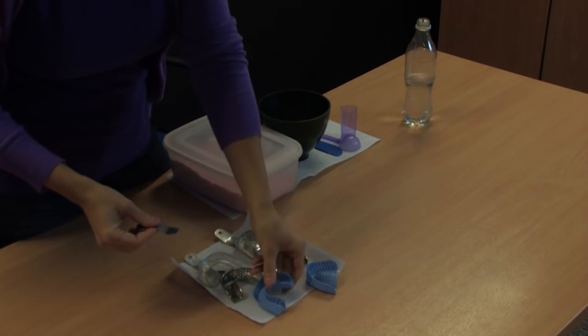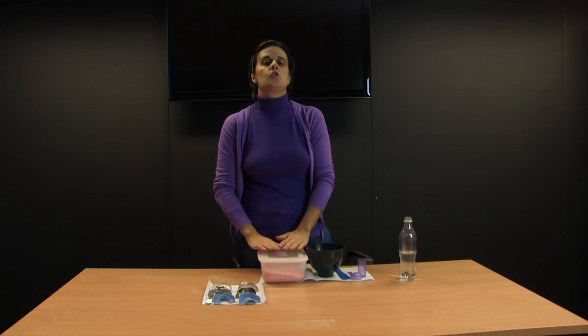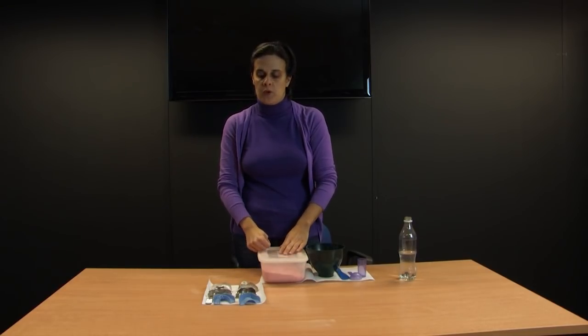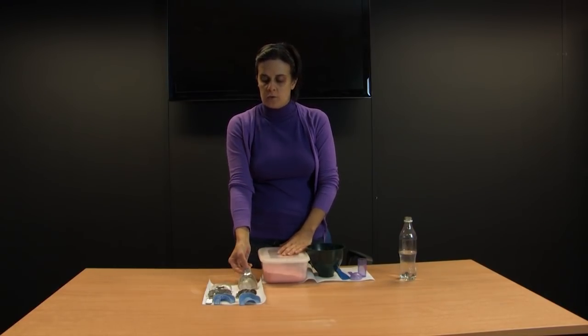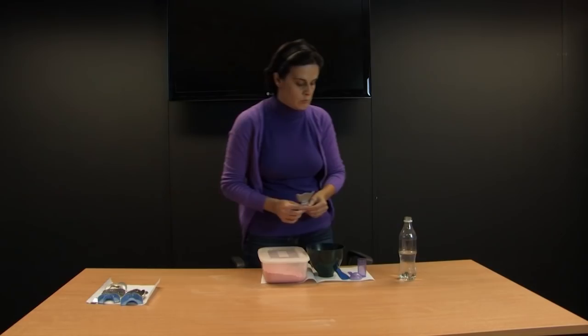Now I am going to demonstrate how to mix the alginate. In the exam you will be set a task — you will have to mix alginate for a specific procedure. They will tell you what the procedure is and you have to choose the appropriate tray. In this task I am going to mix alginate for an upper full denture, meaning the patient is completely edentulous and therefore I have to use an upper edentulous tray. I'm going to choose my tray and put all the others to the side.